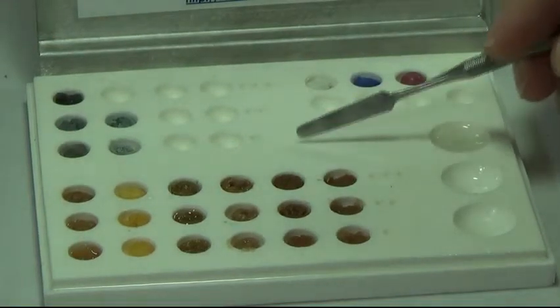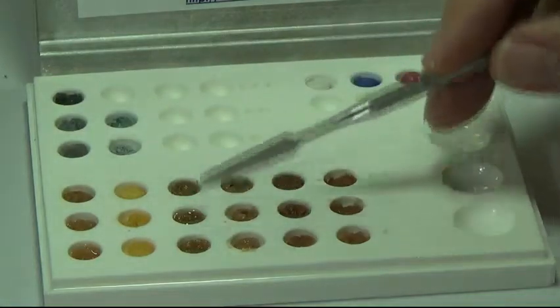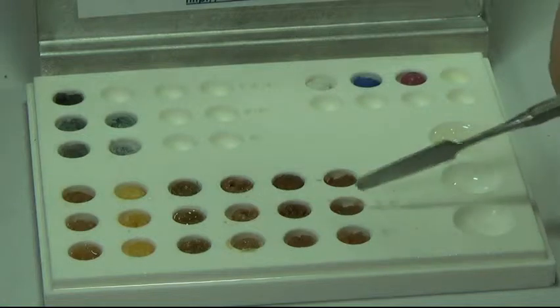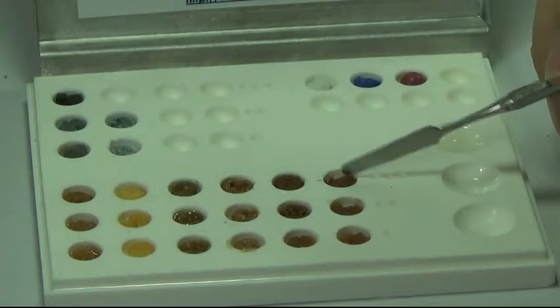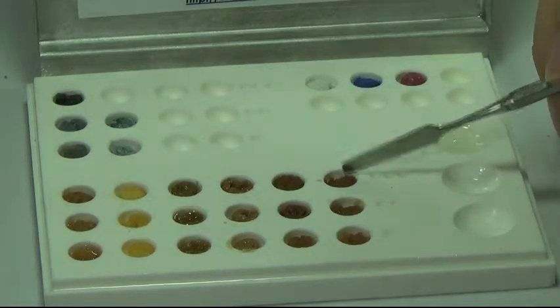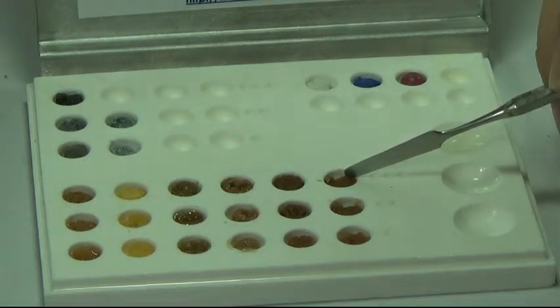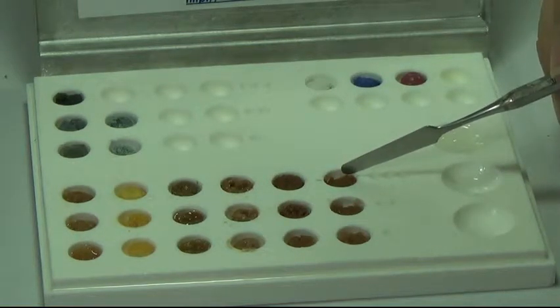When you receive your kit, it will be fully loaded with all the levels available in the system: Level 1, Level 2, and Level 3. These are chroma or shade intensity levels — different 3D shades require different chroma levels to achieve them, such as when you're doing your Emax milling. You have a base shade and then the intensity level off of the palette dials in your shade.